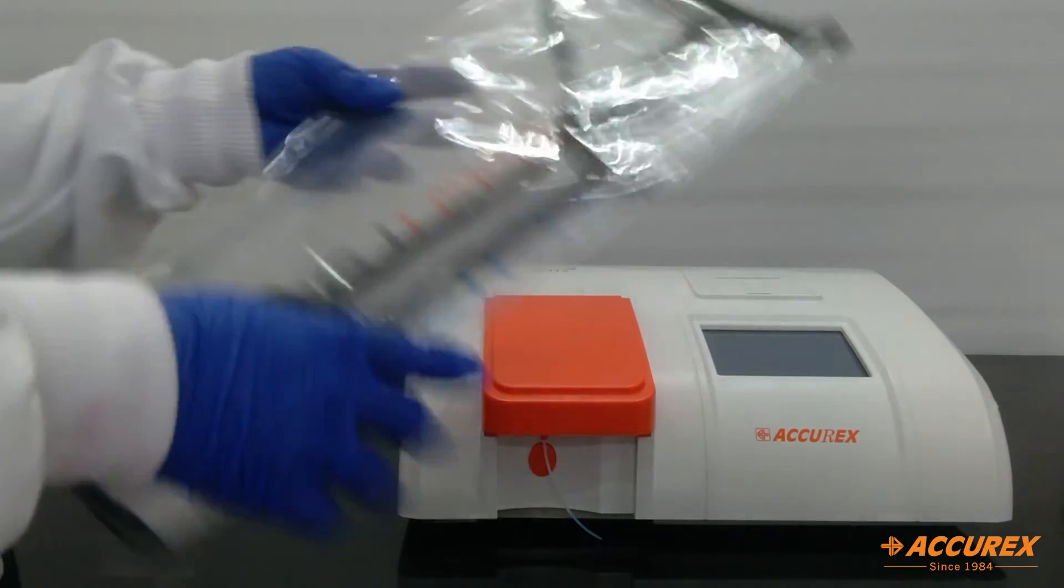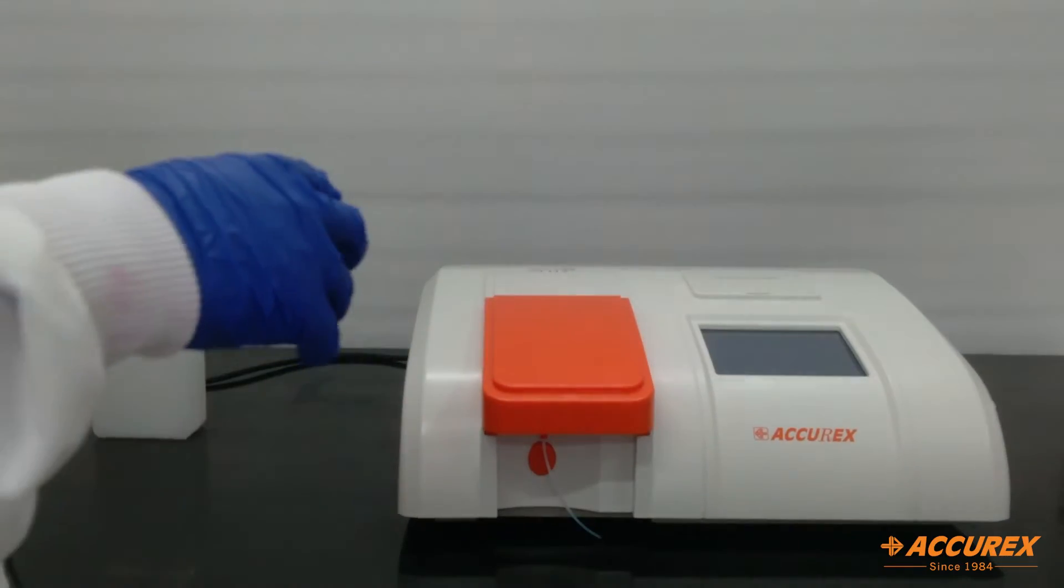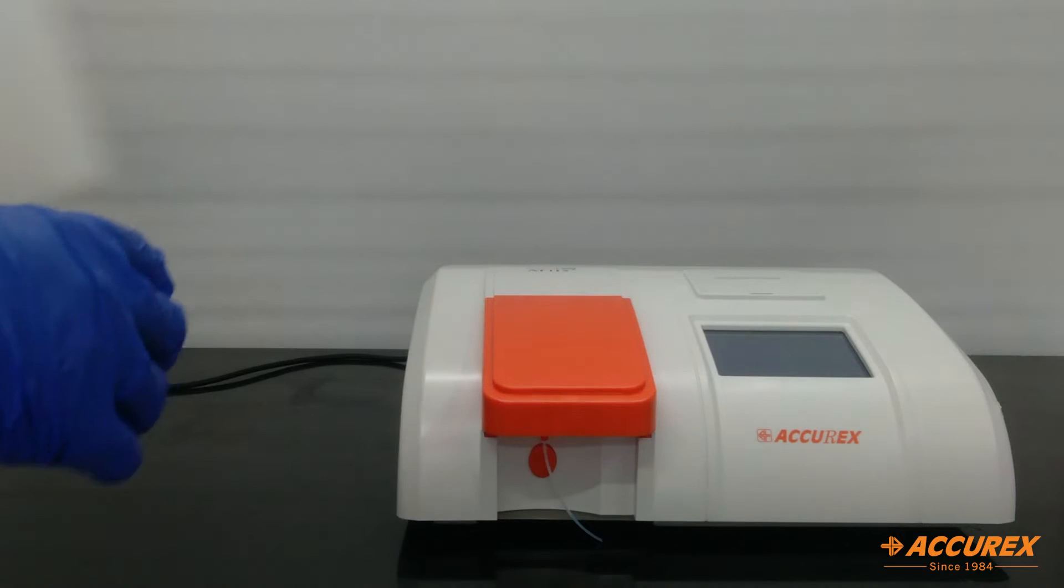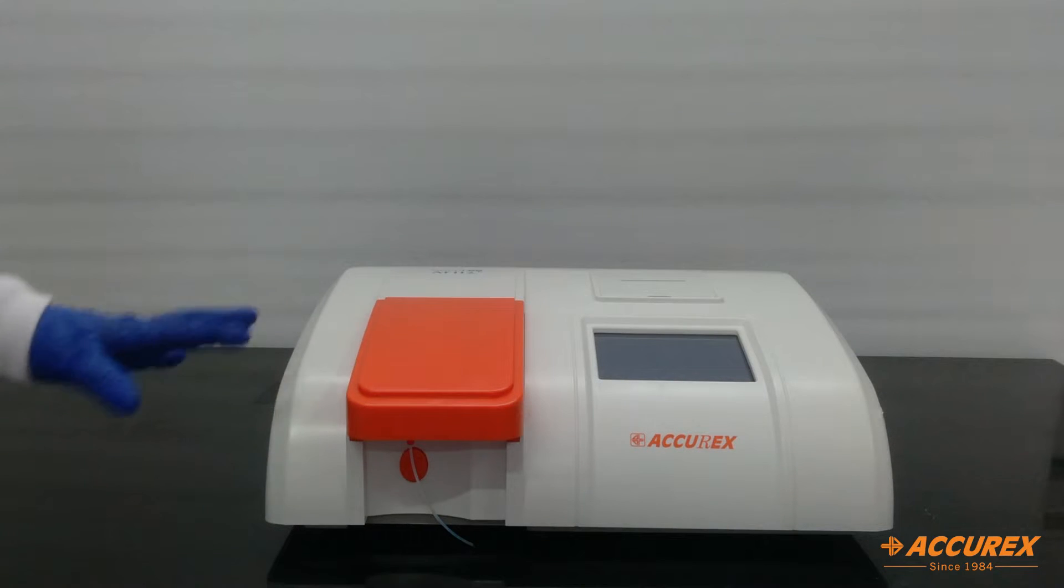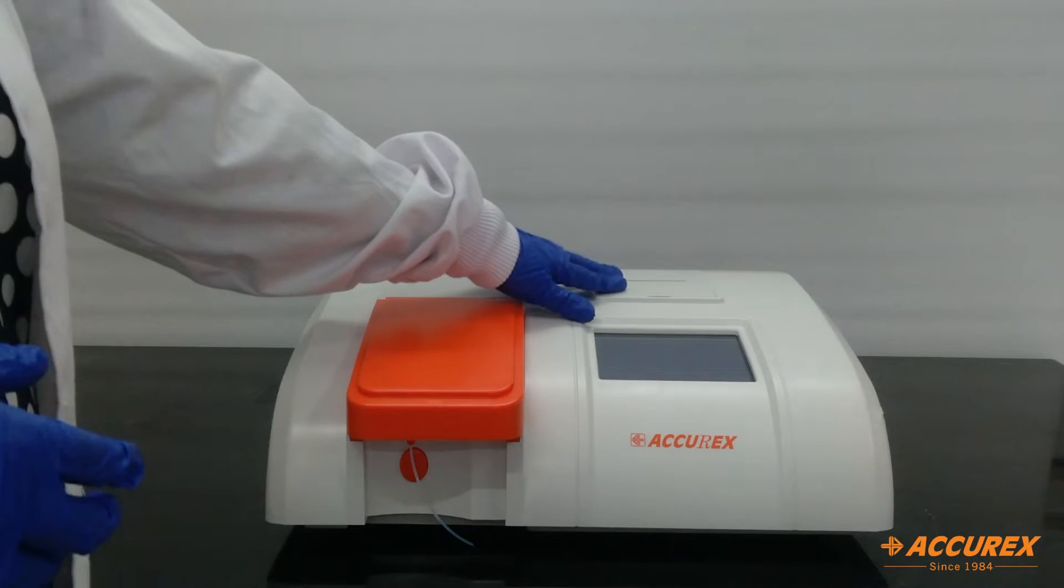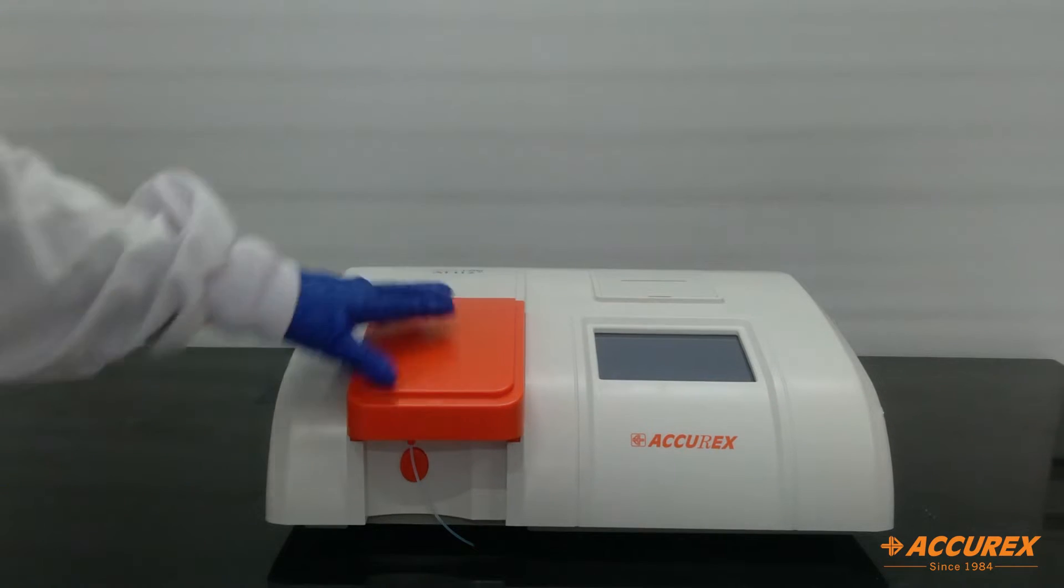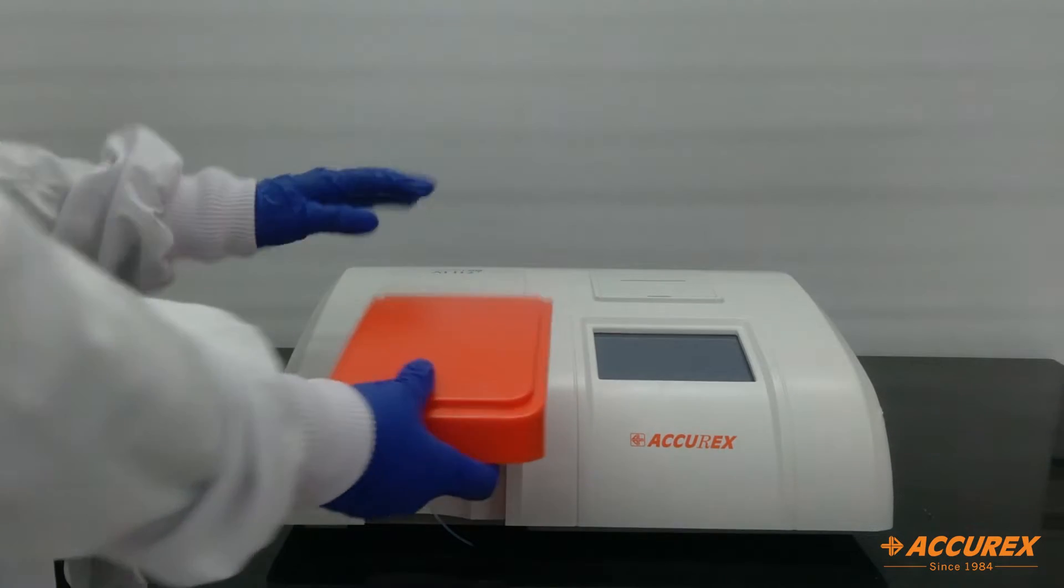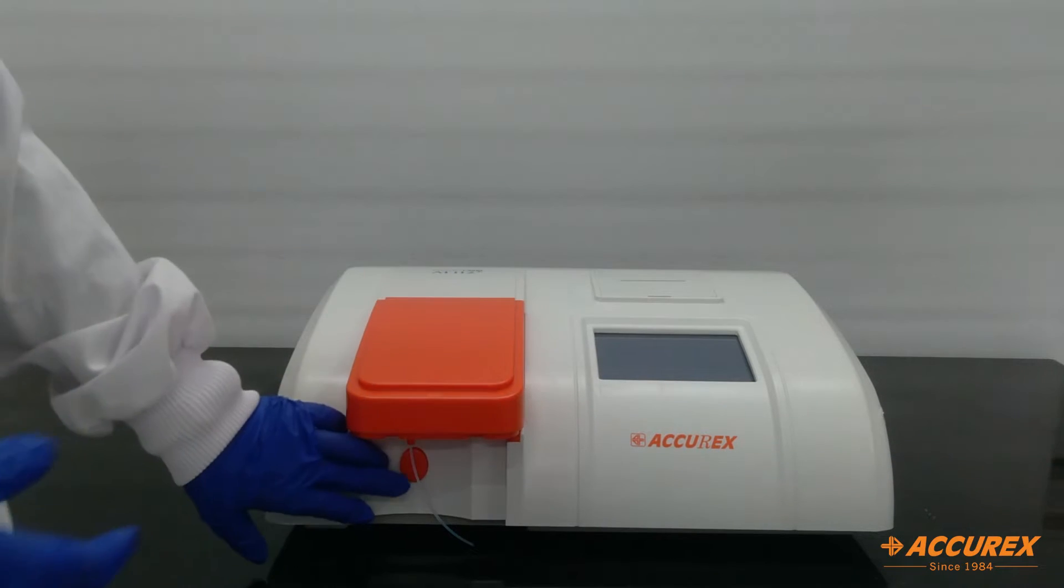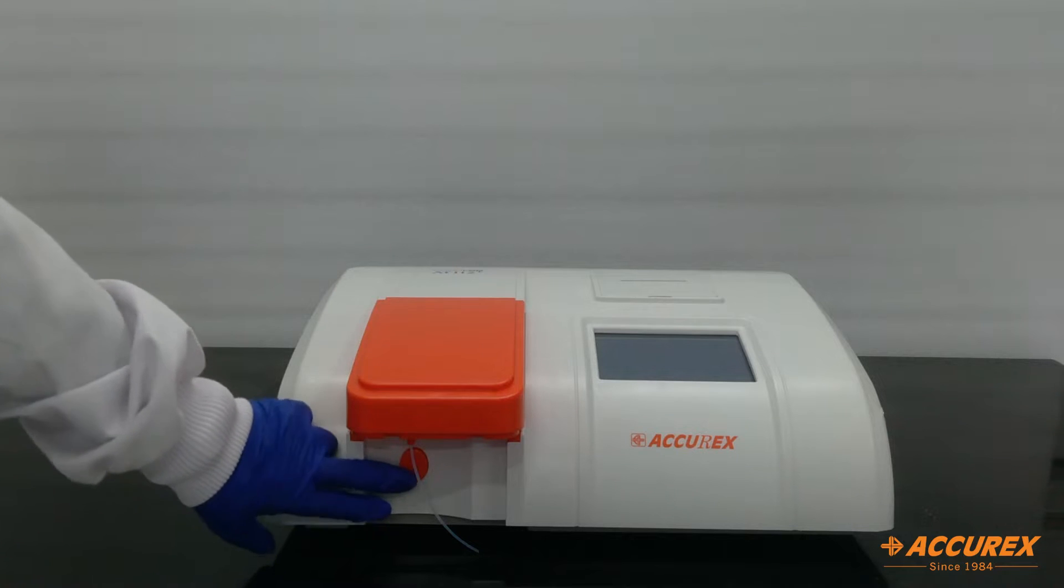The analyzer cover and this is the waste bottle. So now we will see some areas of this analyzer. This is the LCD display. Here is the printer, and inside of this is the measuring chamber. This is the aspiration tube and this is the aspiration switch.